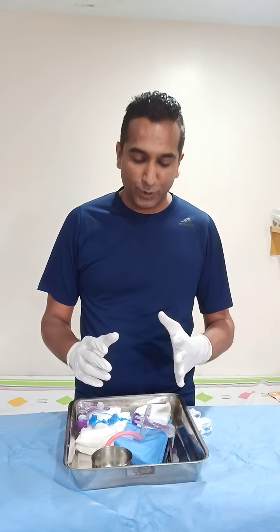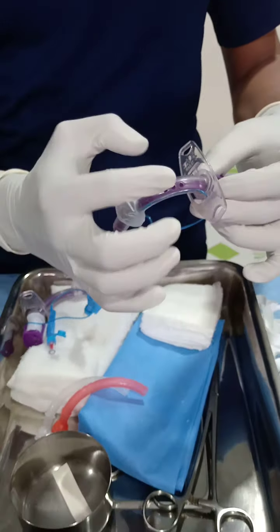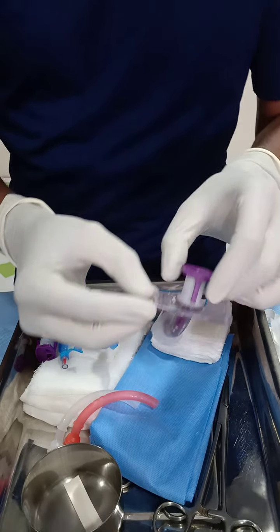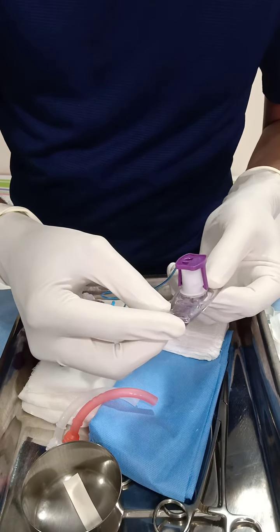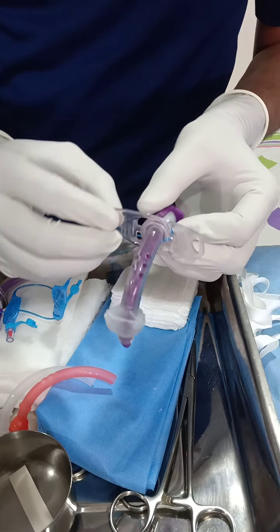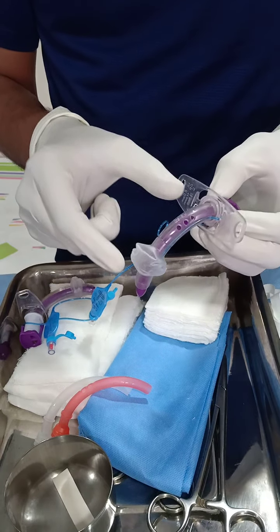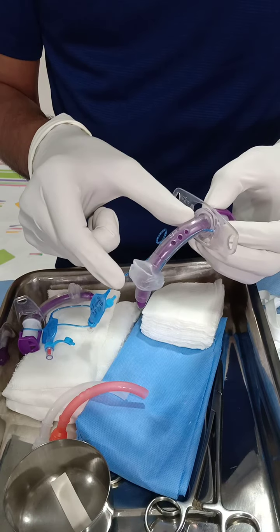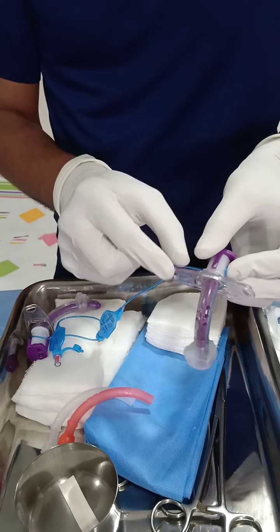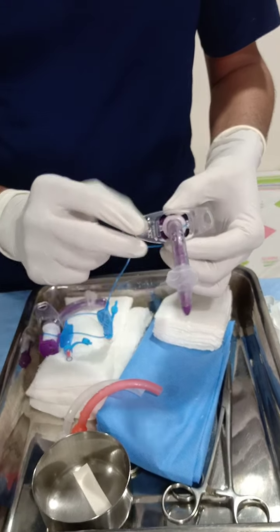Here we will show you the parts of a tracheostomy tube. This tube has an outer diameter and an inner diameter; the inner diameter of this is 8, which you can find written on the flange. The length of this tube from the flange to the tip is 75.5mm. By this you know how well you have entered inside, because in some obese people this length may not be enough, so you have to use an adjustable flange to increase the length which goes distal to the flange.